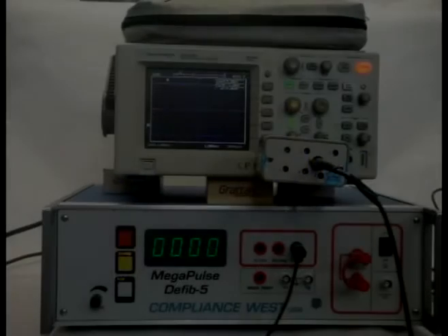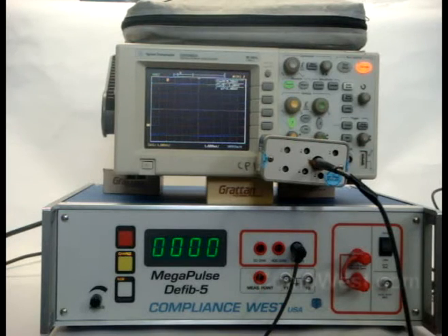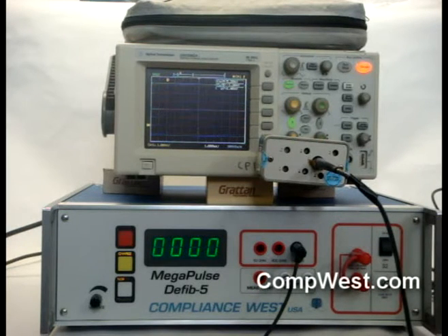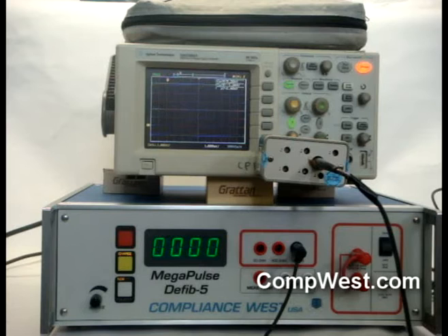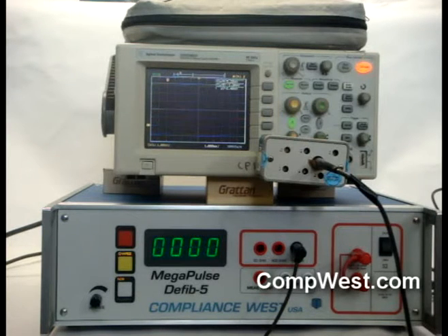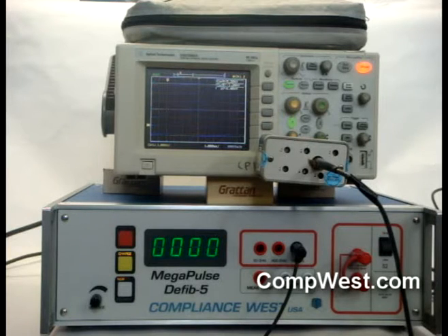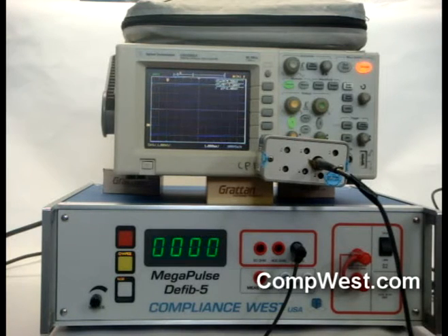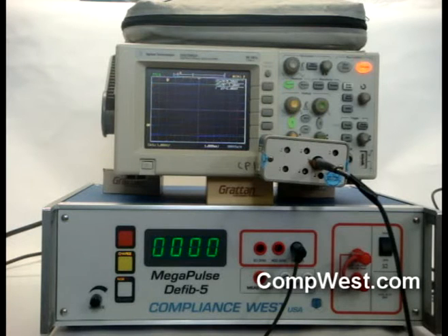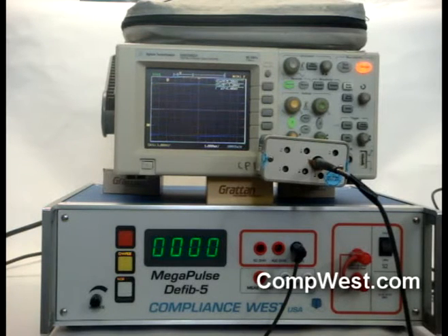Hello. This video will talk about IEC 60601 energy determination with the Defib 5 using the Excel method. IEC 60601-1 issue 3 paragraph 8.5.5.2 outlines the procedure to conduct the energy reduction test to test the delivered defibrillation energy when the device under test is also connected.